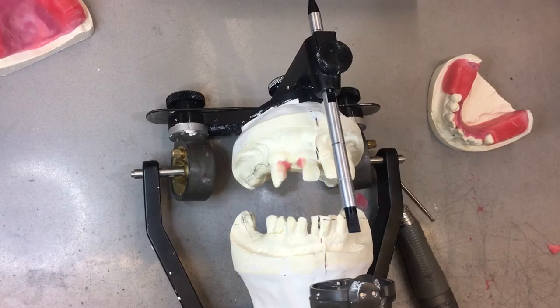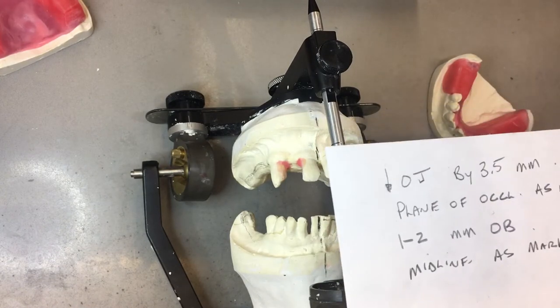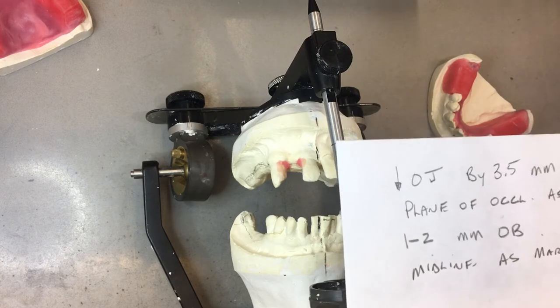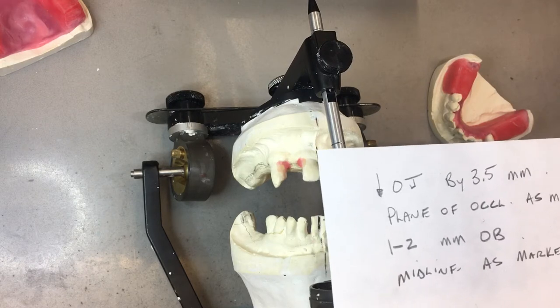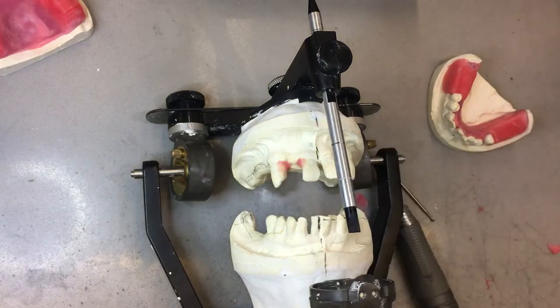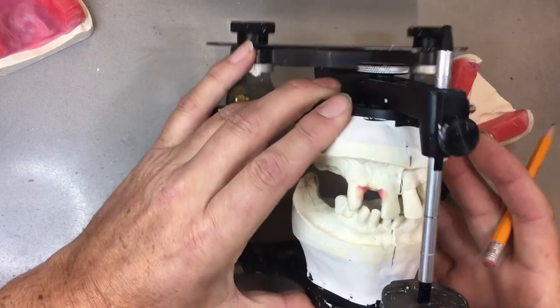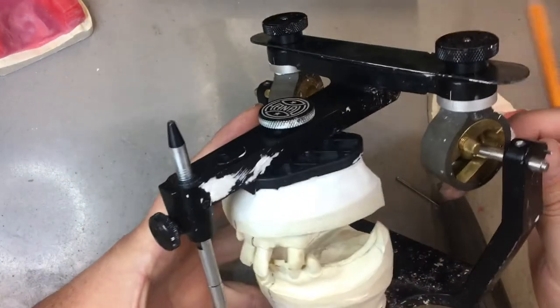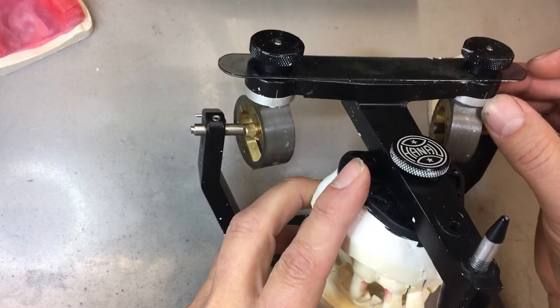With that, we should get a prescription. The prescription might say: please dental technician, reduce the overjet by three and a half millimeters. Dentists like using half millimeters — I'm not sure they know how big a half a millimeter is. It's very small. The plane of occlusion as marked, one to two millimeters overbite, midline is marked. We have all the natural teeth here mounted in an average value mounting — Bonwill's triangle — because no face bow record was taken. We've got 30 degree condylar guidance, 15 degree Bennett shift.